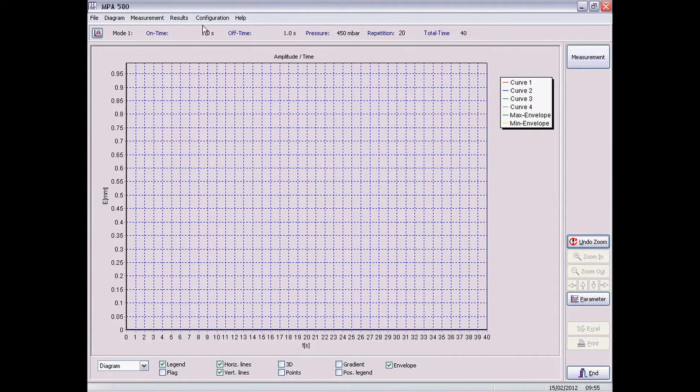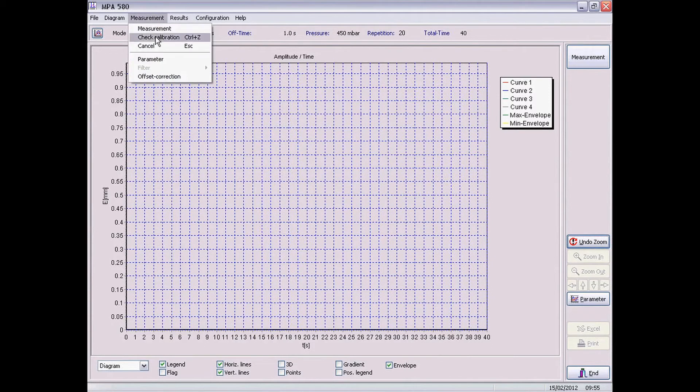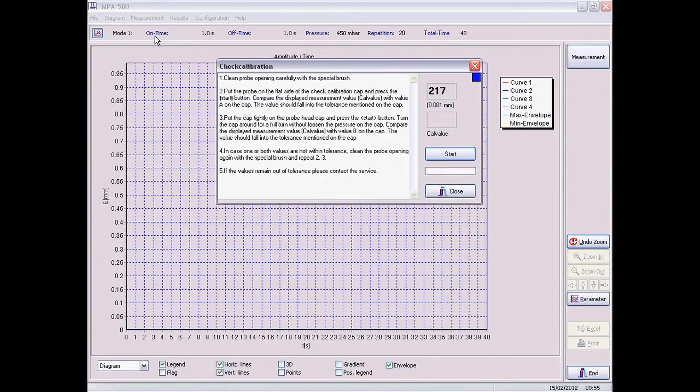So to calibrate, you're going to go to measurement, check calibration, and follow the instructions on the screen.